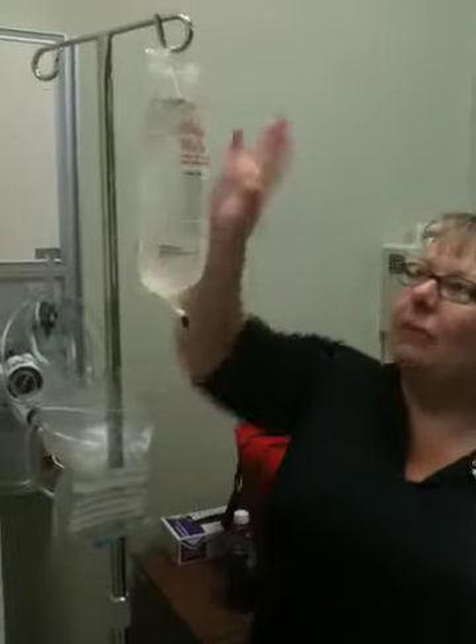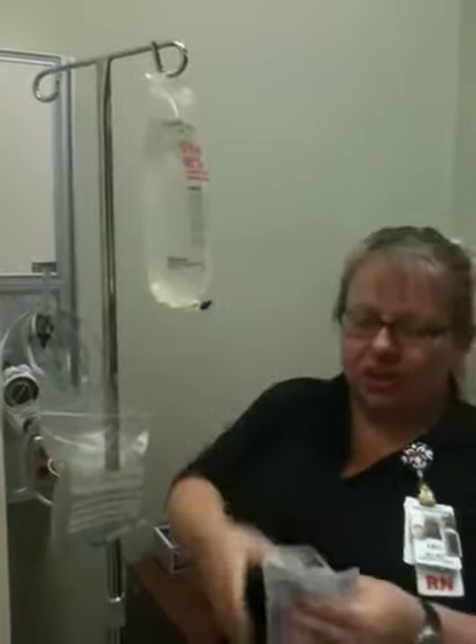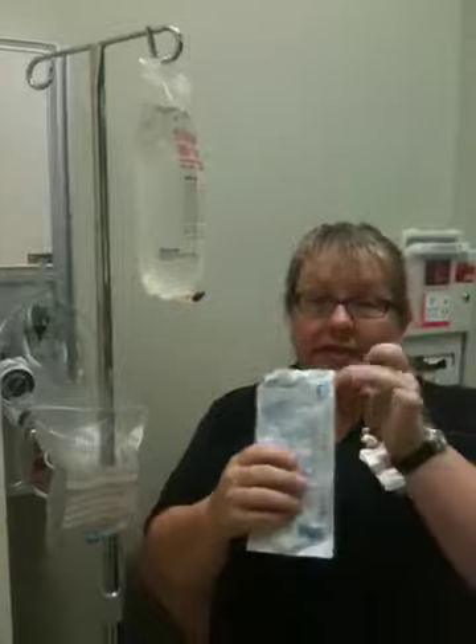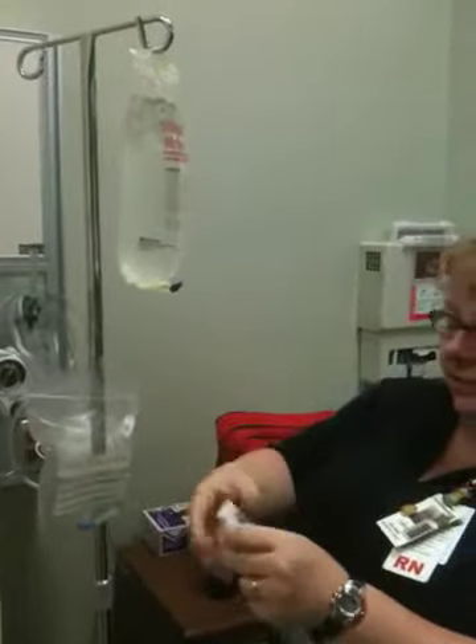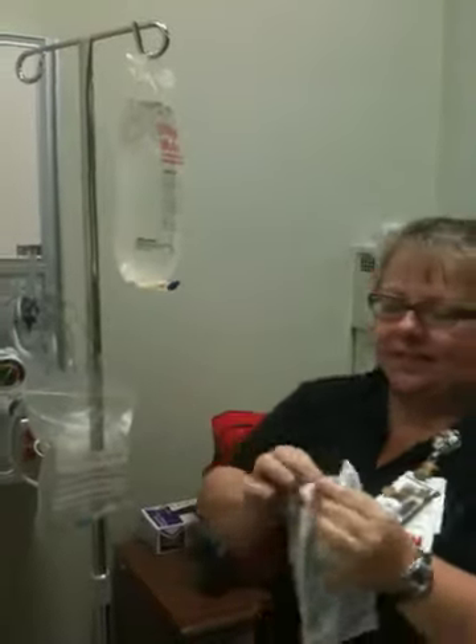Prime in the bag. You've got your bag — make sure you've checked your orders and all that stuff you do at the beginning: your expiration date and everything. Your primary set — you need to know how many drips you've got on, how many drops per milliliter. This is a 10 set.